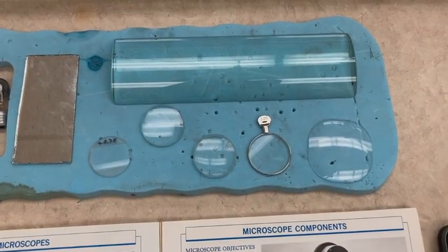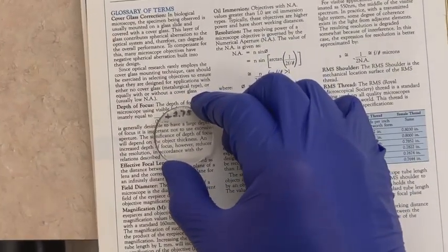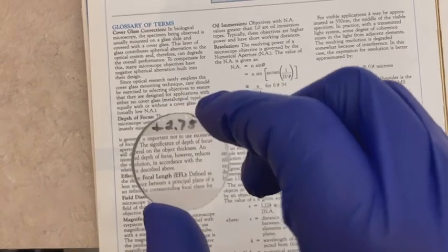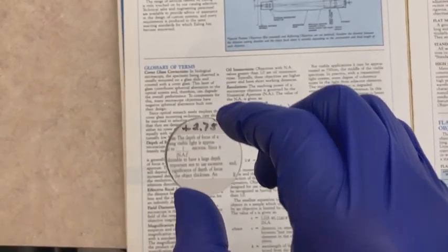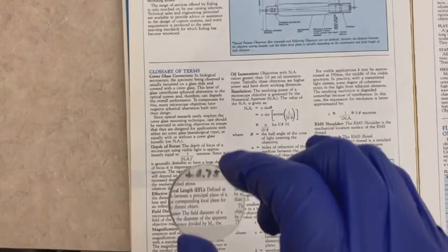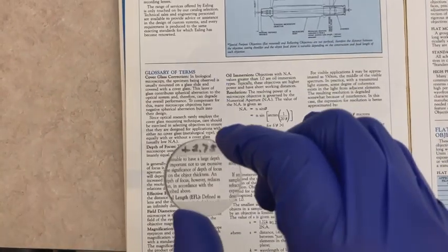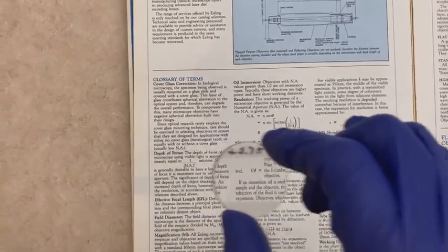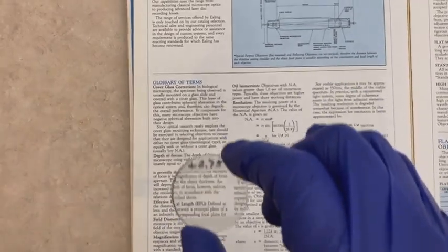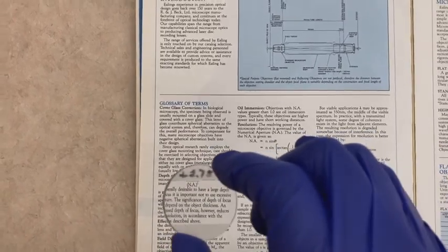of each lens. I'll demonstrate that for this plus 2.75 cylindrical lens. I'm going to find some text, and I'll begin by moving this away from the text, and we can see slight magnification, and also against motion in the vertical direction, which tells me that's positive power. If I move horizontally, we see no relative motion. That means there's no power in that meridian. Positive power in the vertical meridian, 0 power in the horizontal meridian.